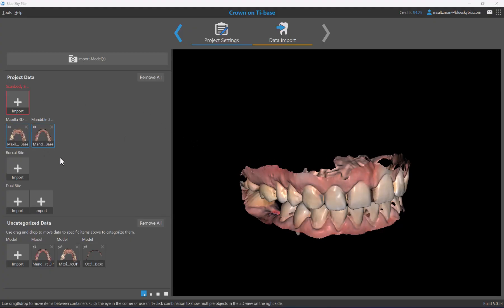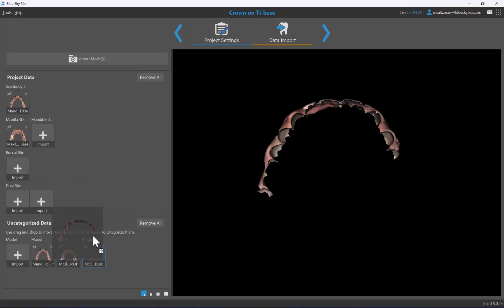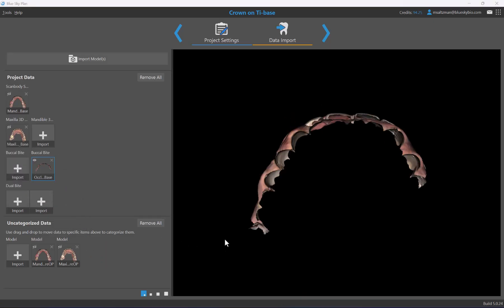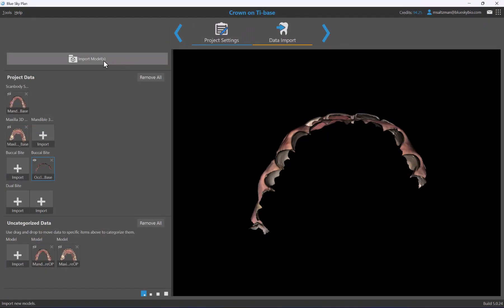Any square highlighted in red is the minimum required data needed to proceed. For this case, the minimum requirement is a model with the scan body visible. The software has identified our maxilla and mandible — it's the mandible model that has the scan body visible. To move it to the proper location, simply grab and drag it with your left mouse button. Uncategorized data like buccal bites may appear if labels weren't automatically recognized.